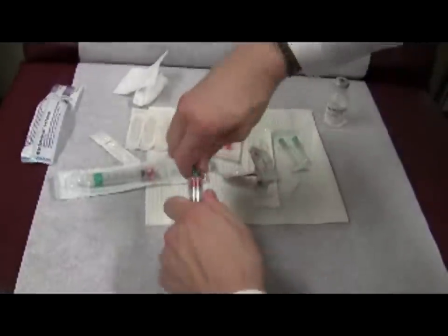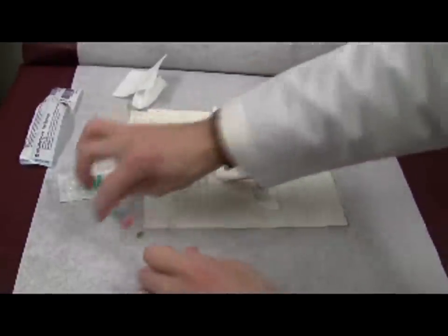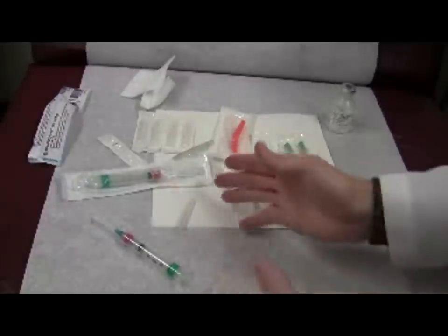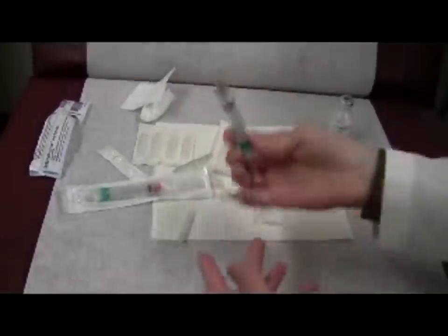If it's not coming off and you're just forcing it — at some point you have to say, put it down. Nothing in medicine should be forced, certainly none of the equipment. So if something gets deformed or whatever, you just toss the whole thing and you start over.